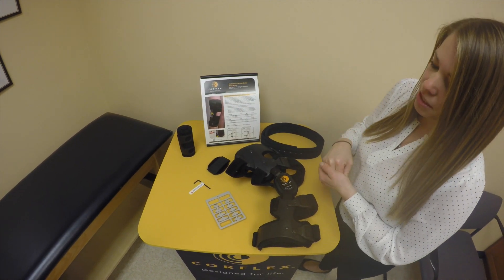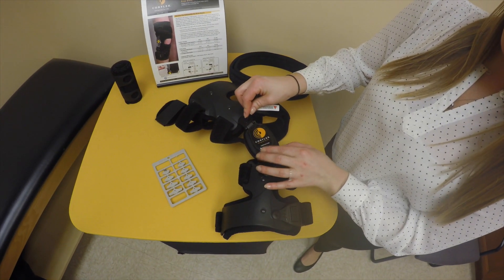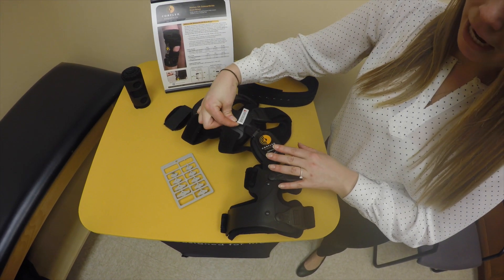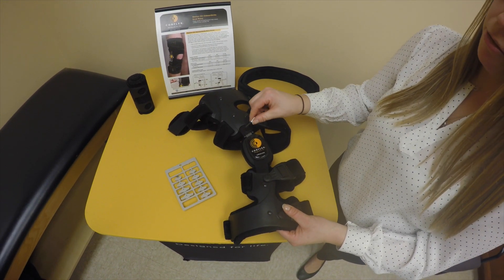In addition, the brace comes with a key tool. This can be used in the mechanism — the screw that's above the hinge — to move either counterclockwise for medial relief or clockwise for lateral relief.